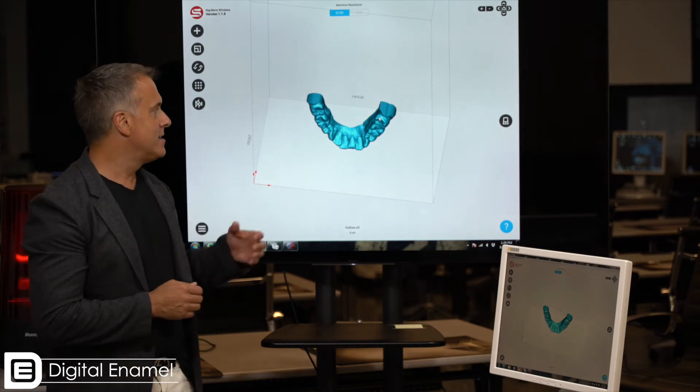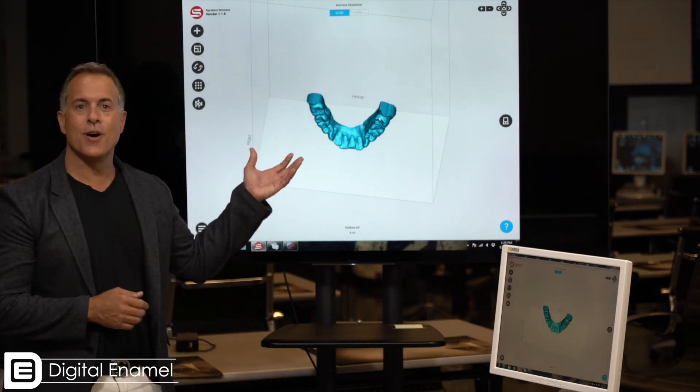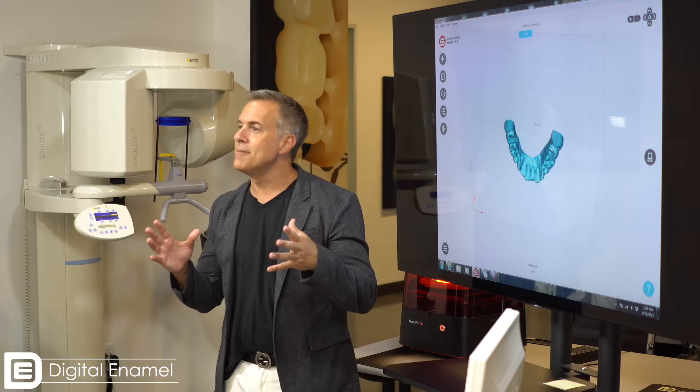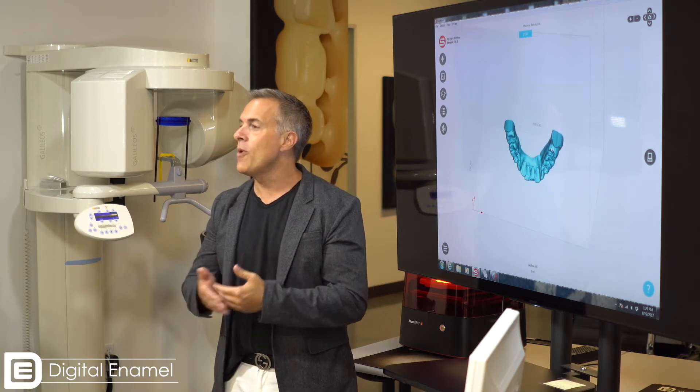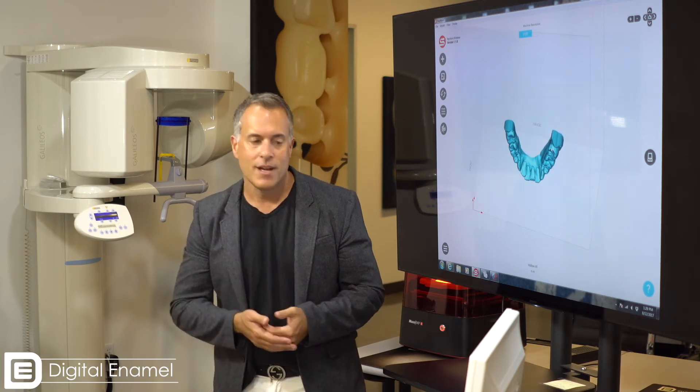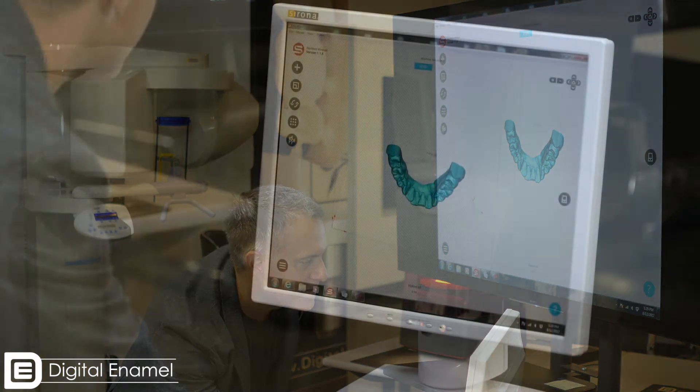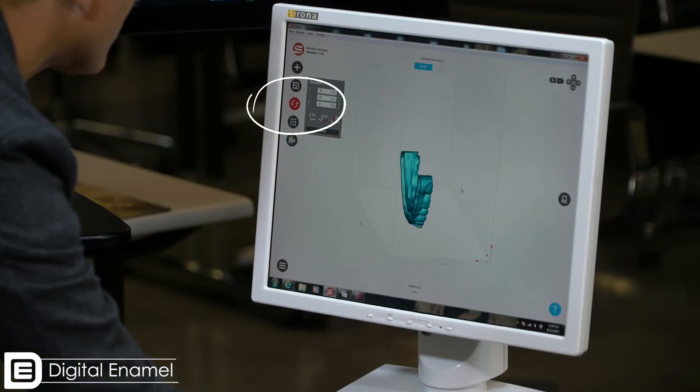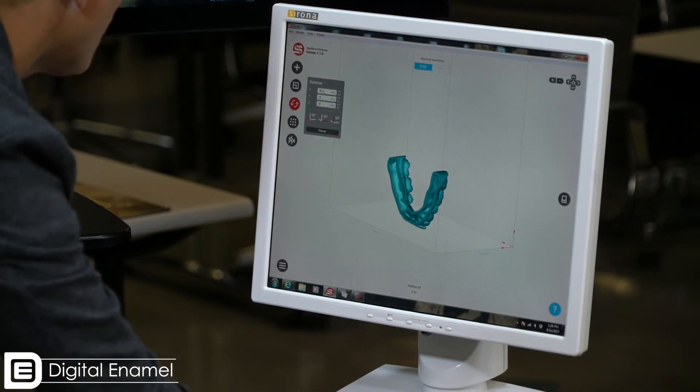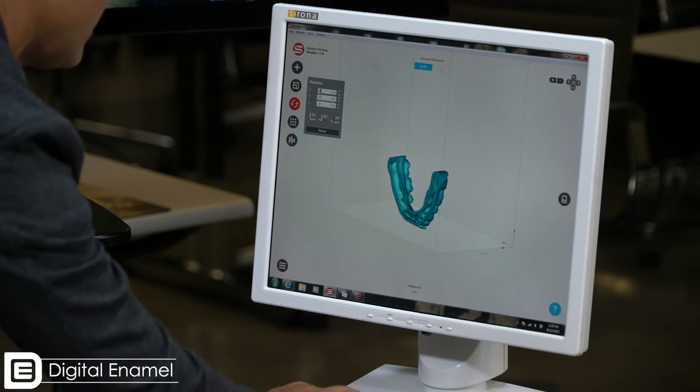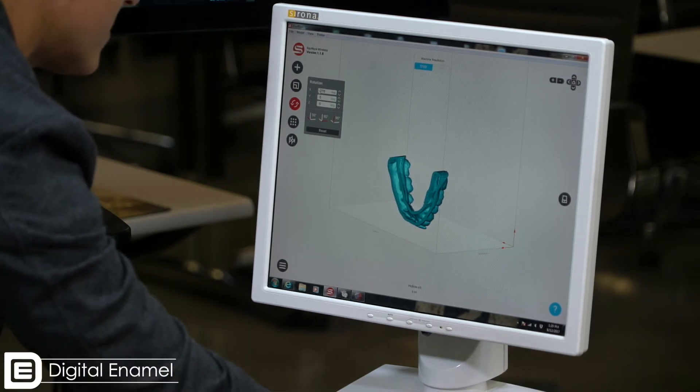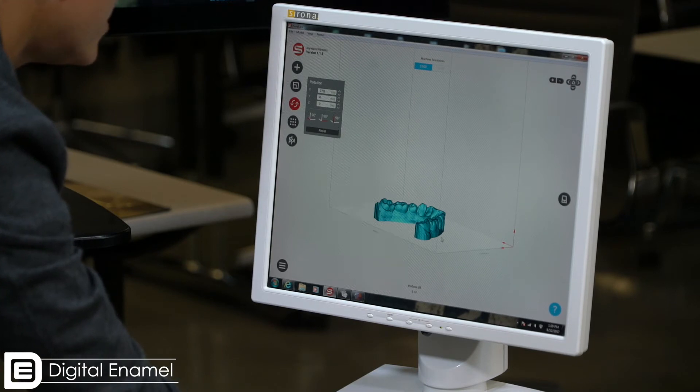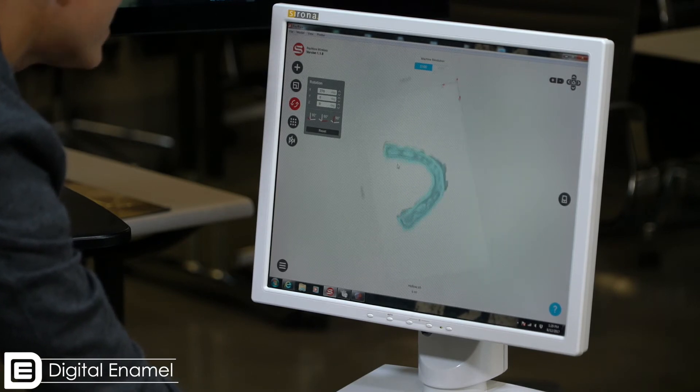But you may notice the model, this is not printable. It's printing on the buccal surface of the teeth. We want it to print flat on that base, so we're going to go ahead and use the rotate function. We can either move the model around with these little arrows or simply type in a number. Here I'm going to type in 270 degrees, which is going to make it flat on the base.